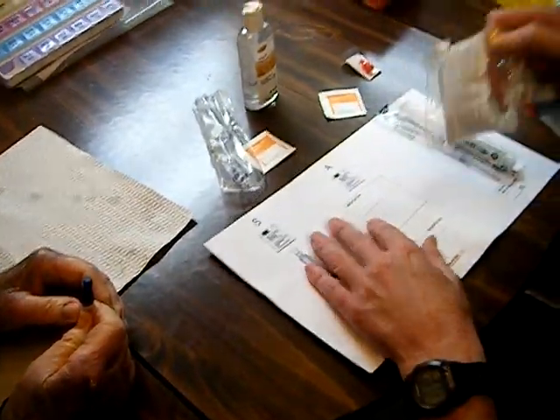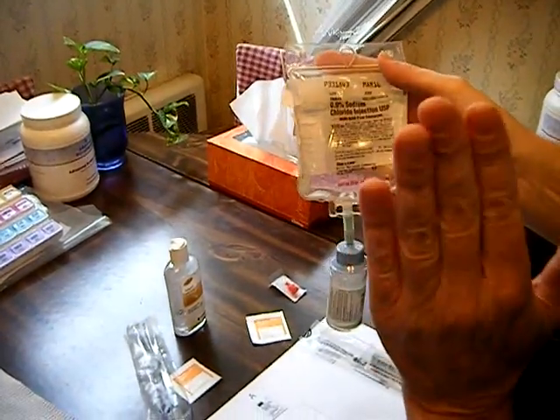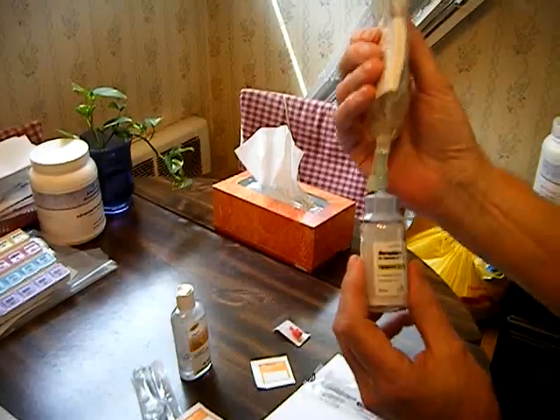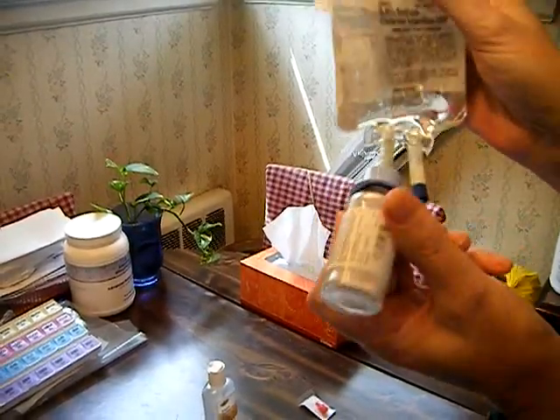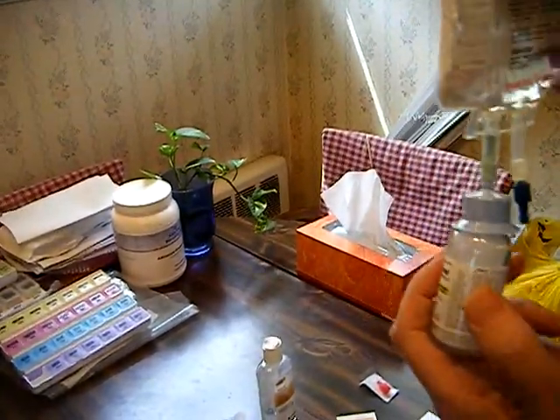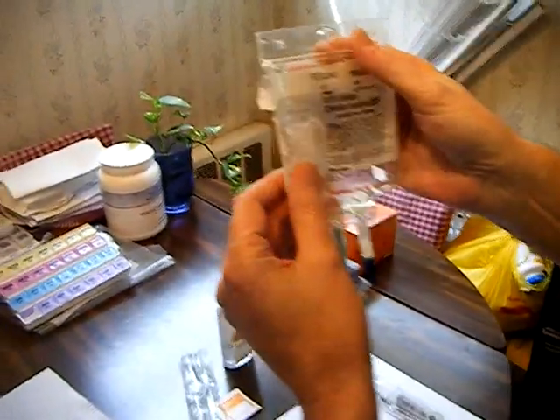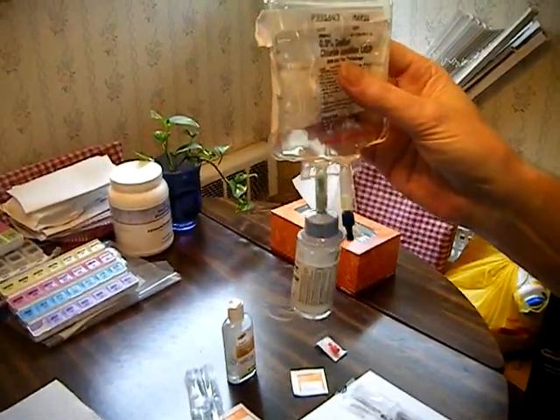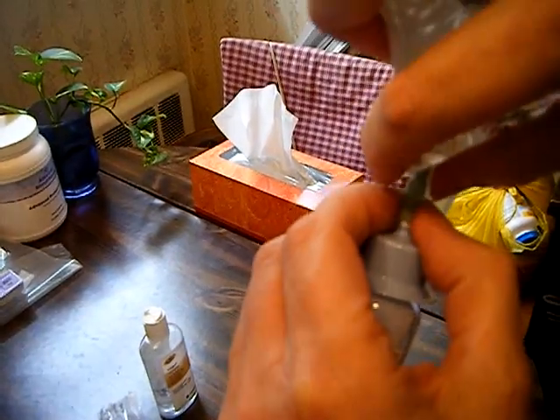Now here's the main step. Here we have regular saline water, and inside this reservoir, you'll notice by shaking it there's a salt-like substance — it looks like sodium bicarbonate. That's the antibiotic. That has to be mixed into the IV bag along with the saline water. To do that, simply notice this neck here — I'm going to snap it like a soda cracker or twig.